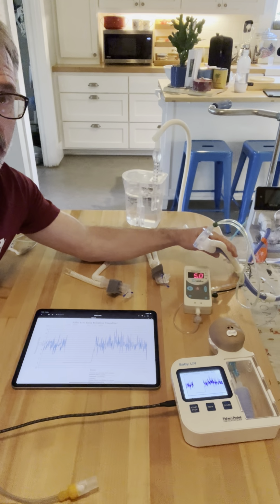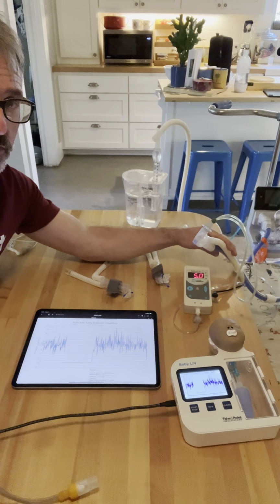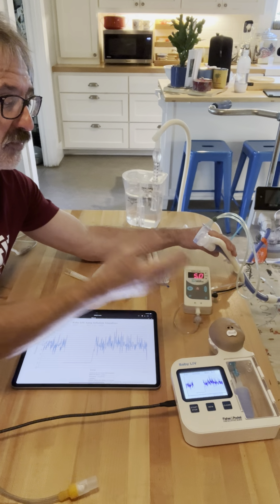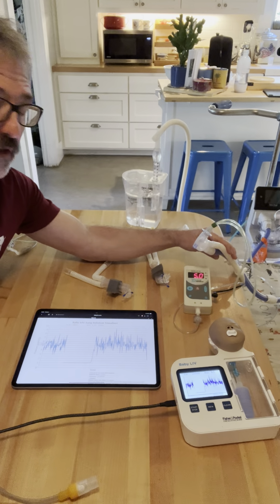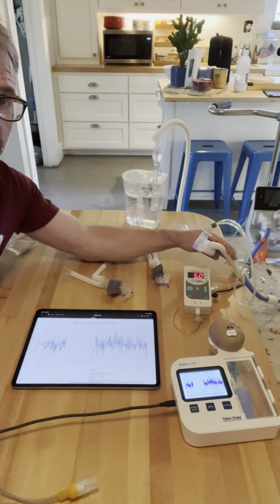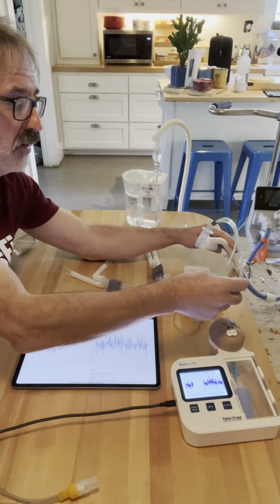And the reason why is, let's go back to what we were talking about before, that large bore tubing is necessary for whether you're using a ventilator or a bubble CPAP to communicate with that baby. And if you have a narrowing of the tubing, the flow and the pressure is slowed down, causing back pressure, which forces it over into the water, and it tricks your alarm.